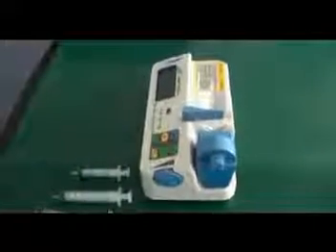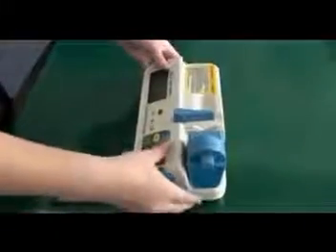Step 2. Measure the length of the syringes. You may use a ruler or use the scale on the side of the pump to measure the length of the syringes.